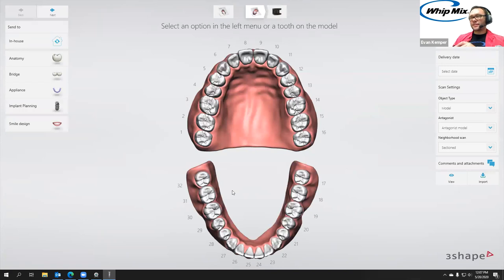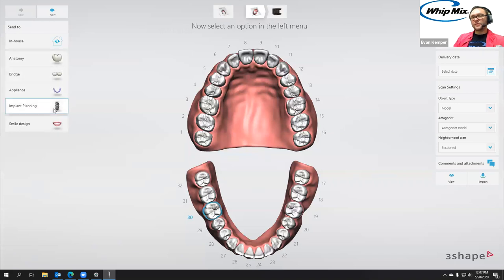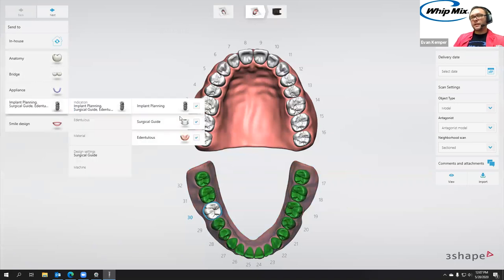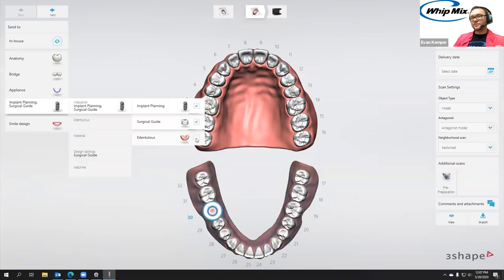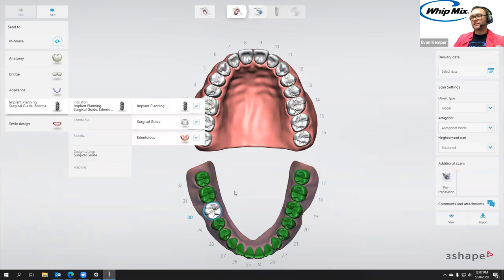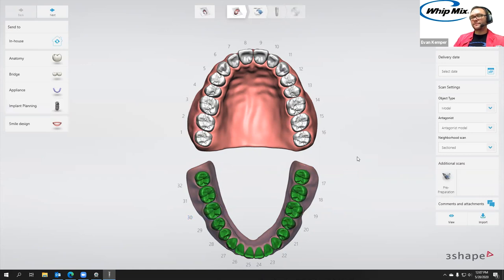The sample case we have is a lower denture, mainly because that lets you see the nerve mapping. If I'm going to be doing an edentulous case, all I have to do is click one tooth on the arch, go over to Implant Planning, and make sure the edentulous checkbox is checked — then all the teeth show up in green. That's all you have to do as far as setting up the order form. You'll notice I don't have the scanner icon because we're importing two CT scans — we don't actually have any models we're scanning.